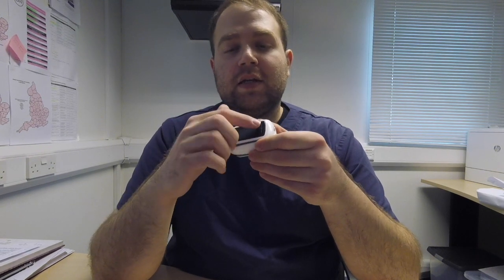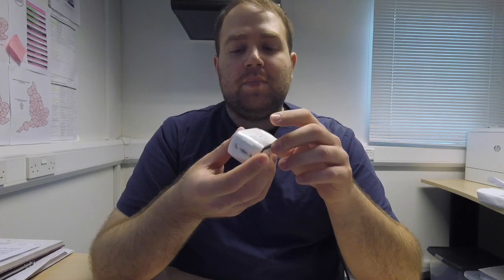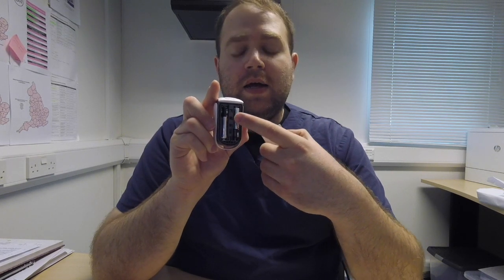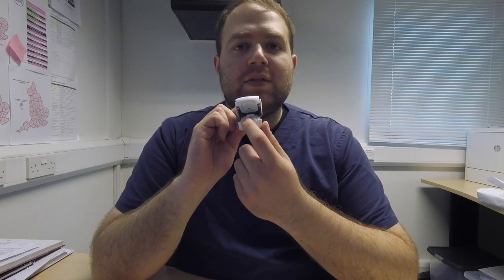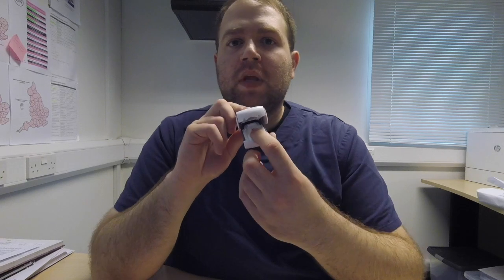The device itself is basically a clip. It has a screen on the front, a touch control, and a button on the back that's just to open the battery compartment — it uses two AAA batteries. To turn it on you just need to open the clip. Inside, the material looks like silicone, and it's pretty comfortable. It has a sensor on the back.